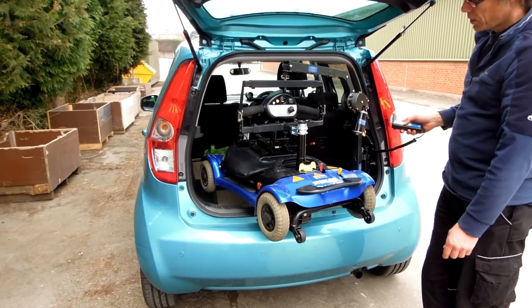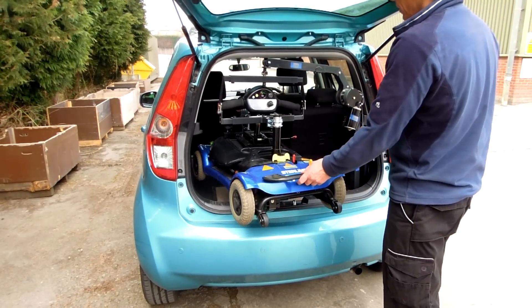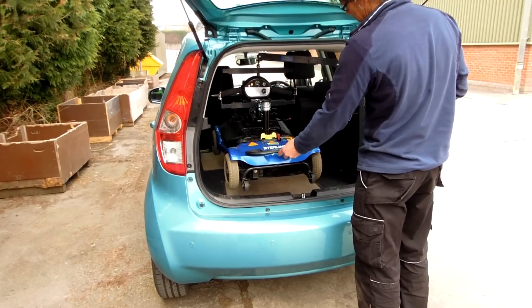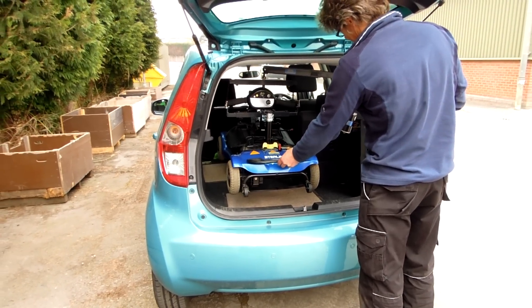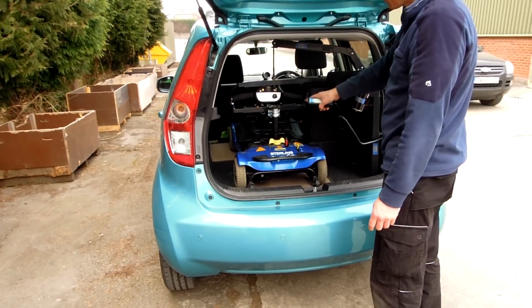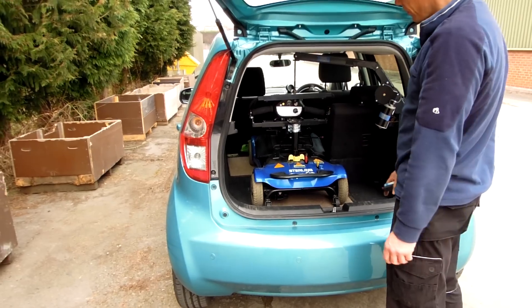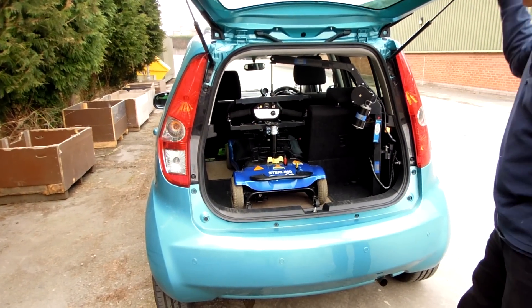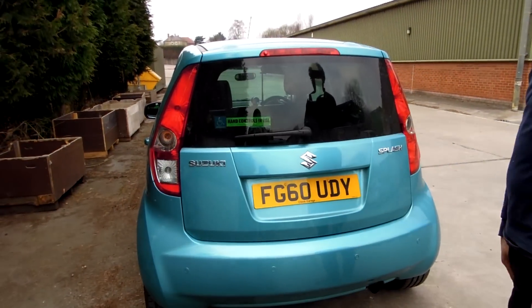Makes life a lot easier. Just take it all to bits. We've got one seat remaining in the back, we're about to fold the other seat forward as well. Put it on there with a little magnet, turn it off. And away you go.